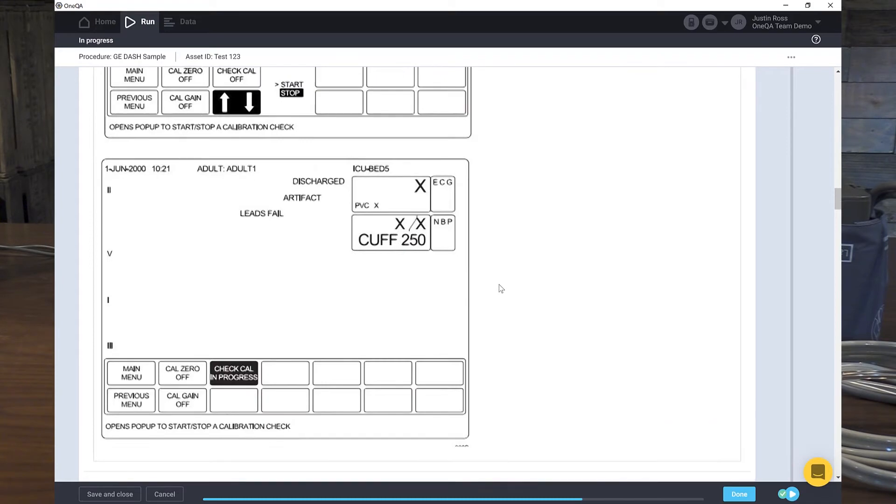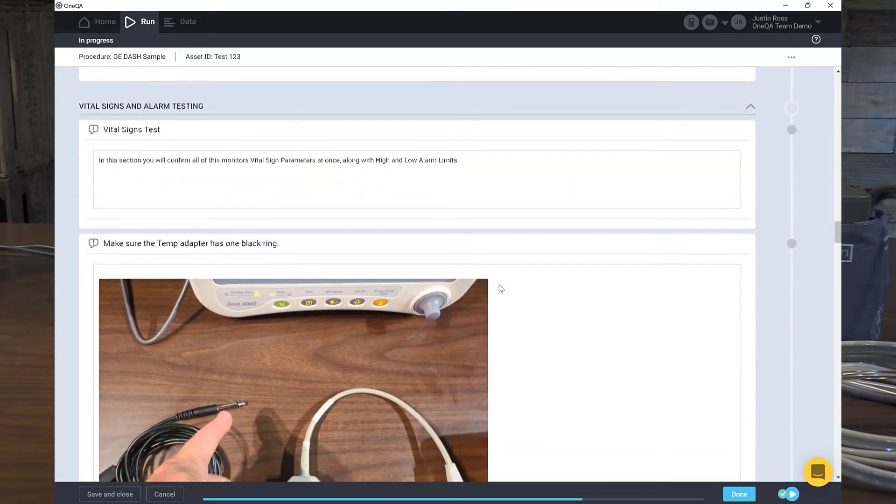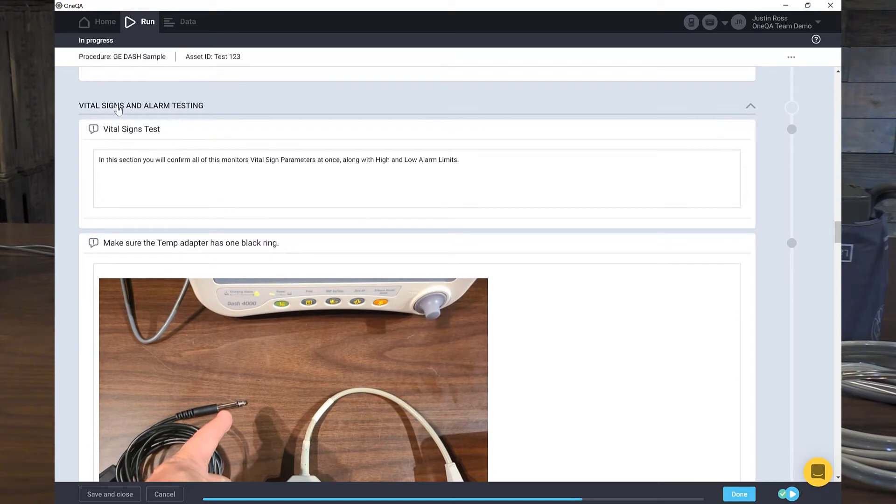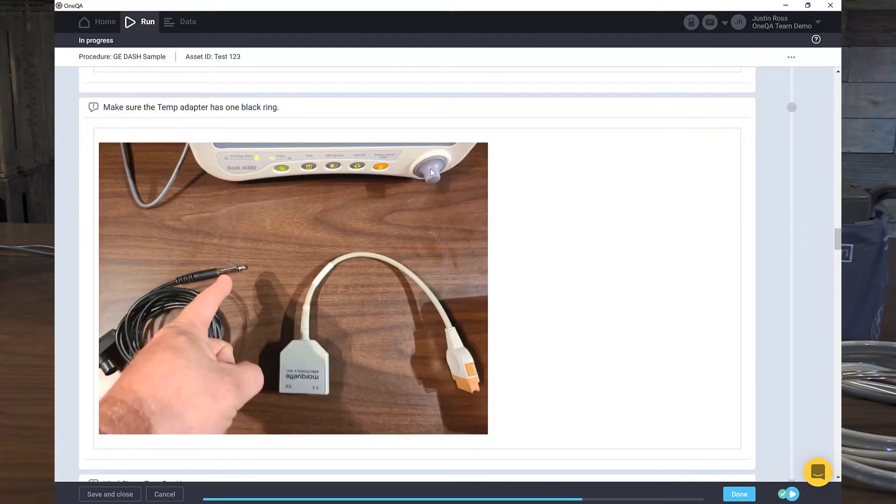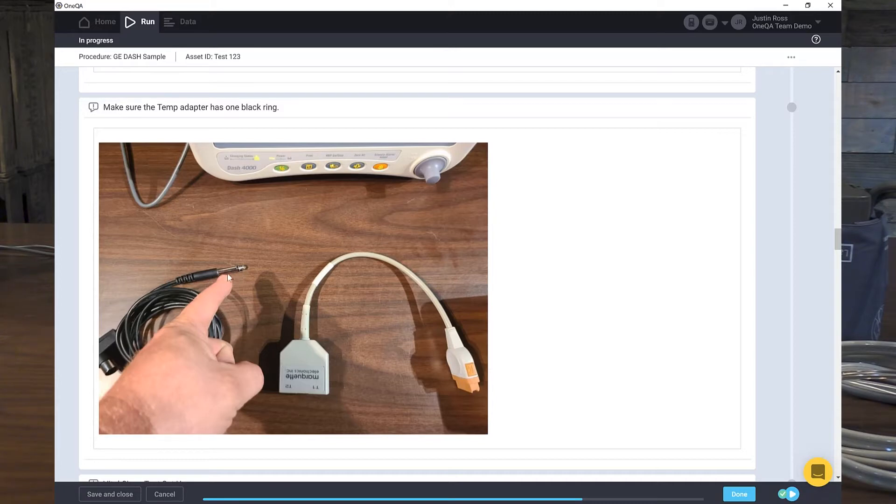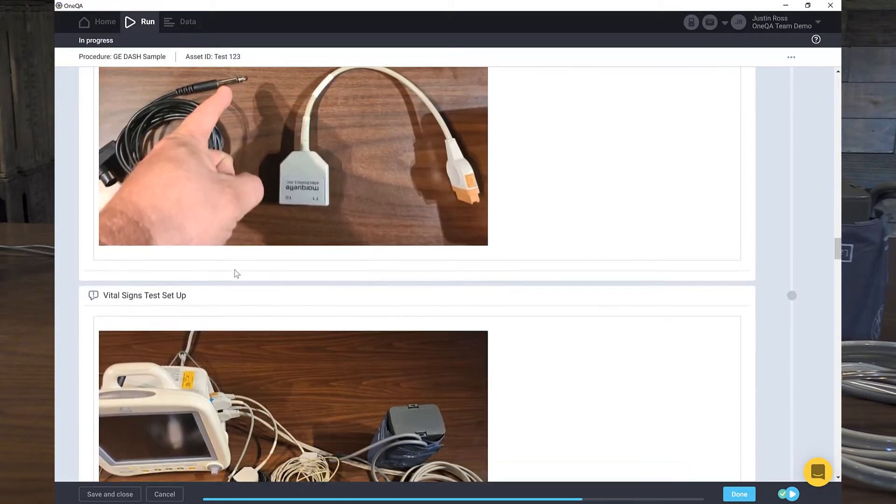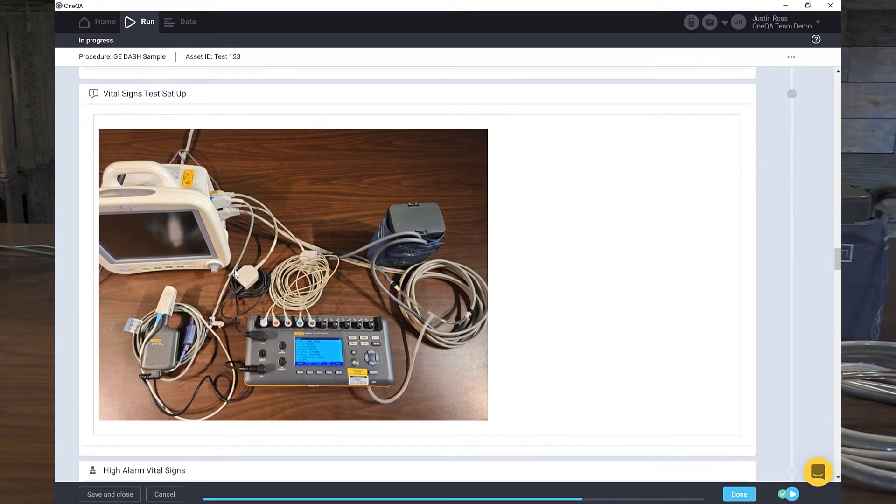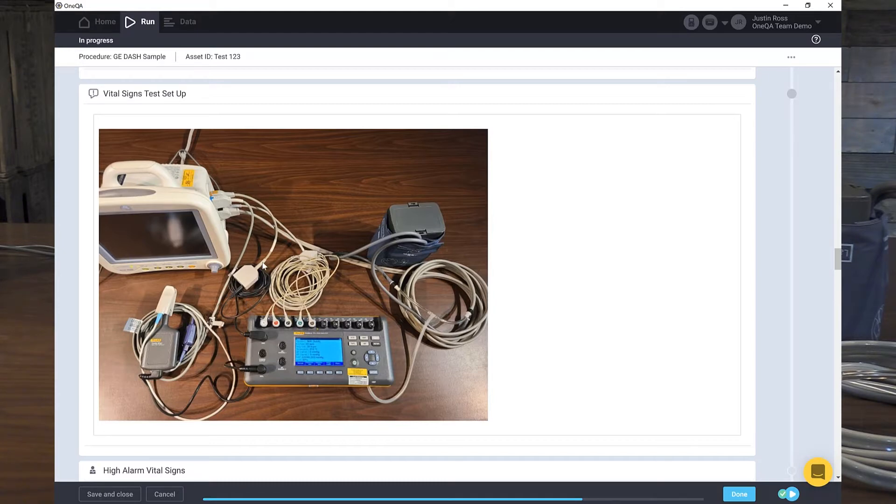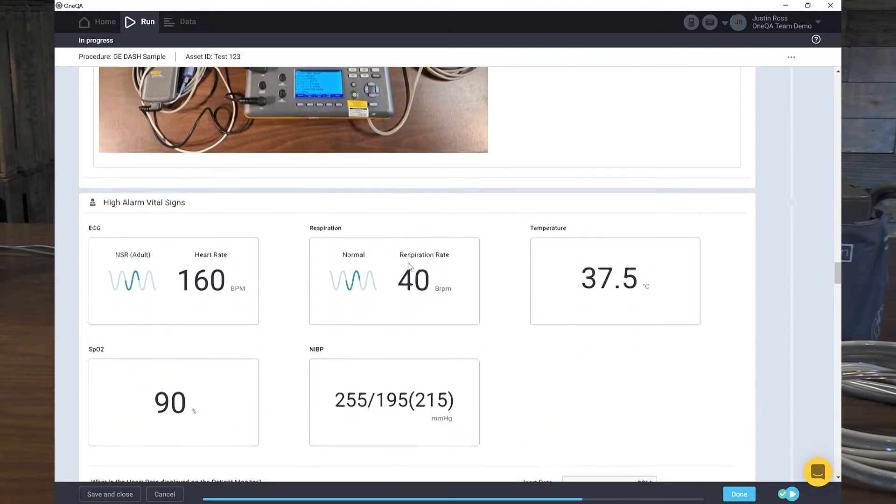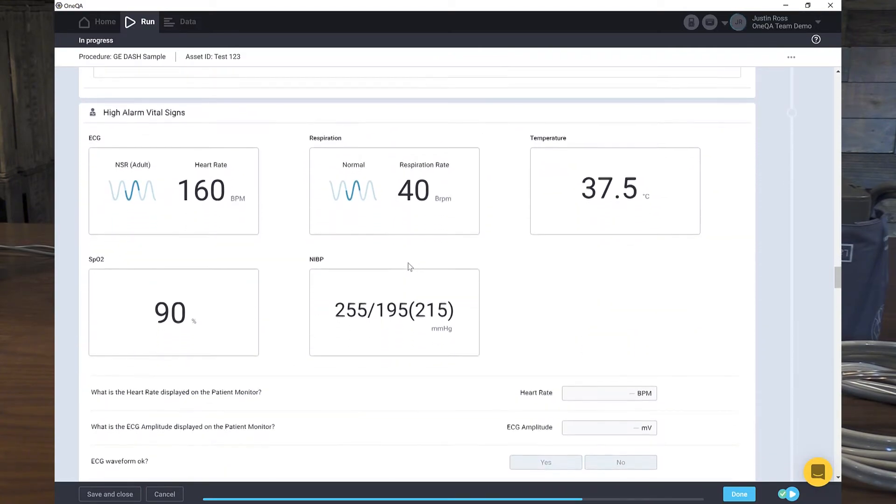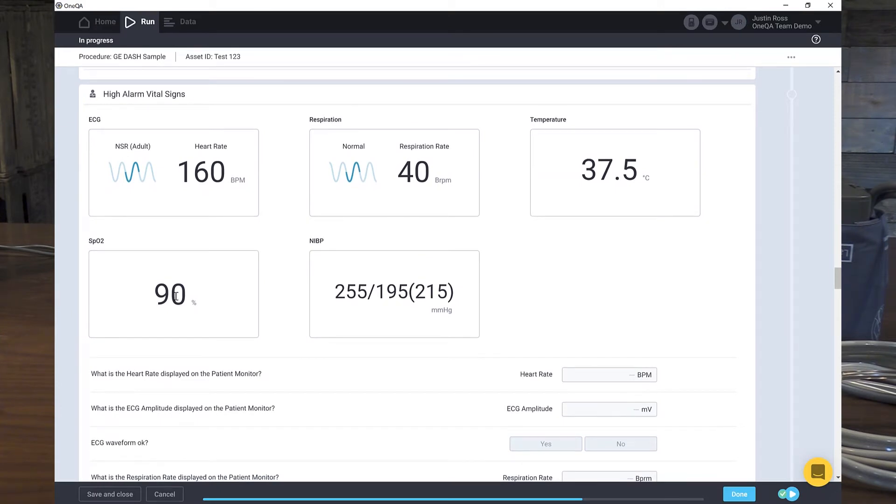So now let's move down to the next step. The next step is we're going to do the vital signs and alarm testing. Here's our instructions. We're going to test the high and low limit alarms. And I put a special instruction in here because yesterday when I was setting up, I grabbed the wrong temperature cable and it had the two black rings. I need the one with one black ring. So I have the verbiage and I have a picture right here showing me to use this temperature probe adapter. And then I scroll down and here's exactly how I need to set this up. Here's my SPO2 to the finger probe. Here's that temperature cable I just showed you connected into the adapter, into the monitor. My ECG, my non-invasive blood pressure that we left in from the prior step. So that's good to go.